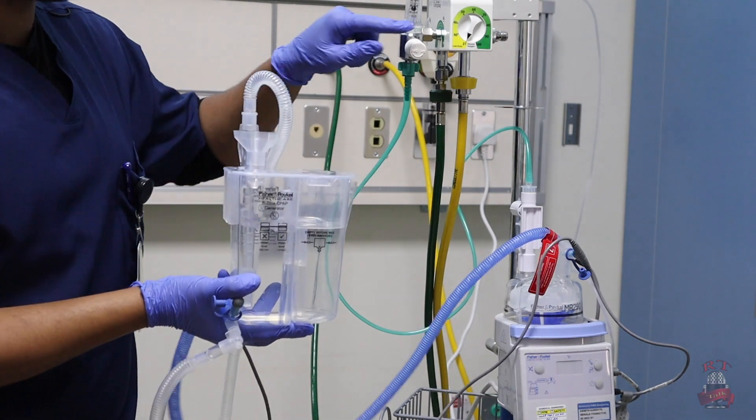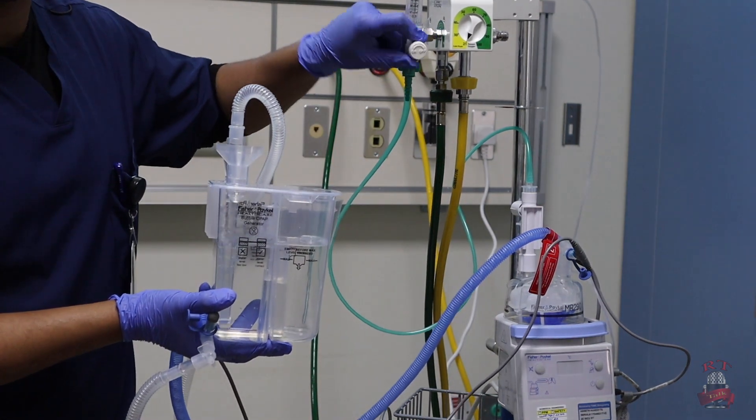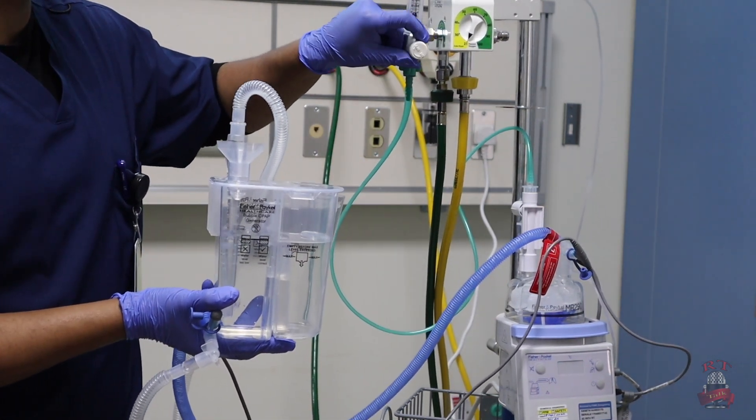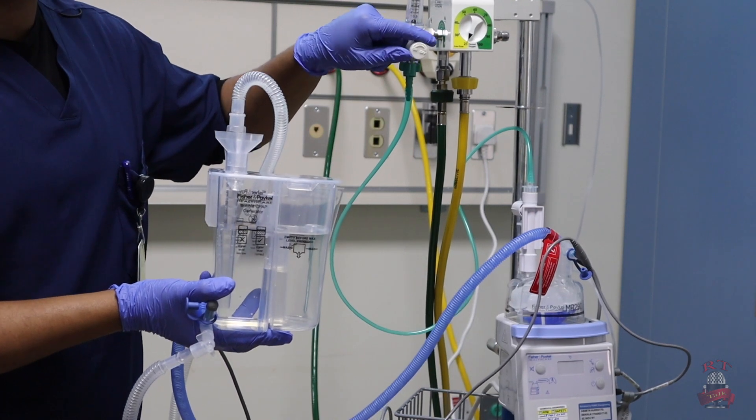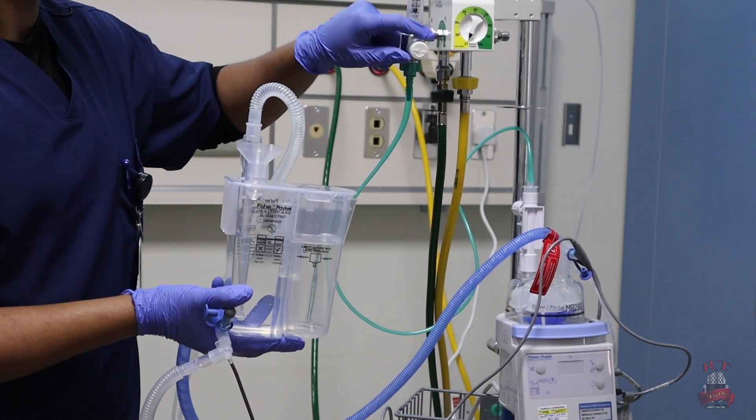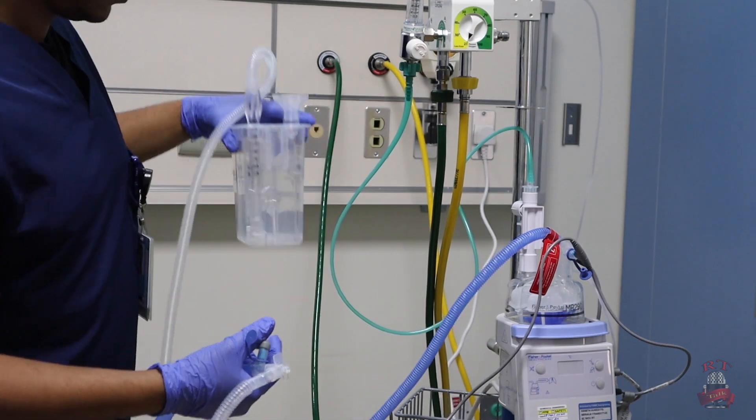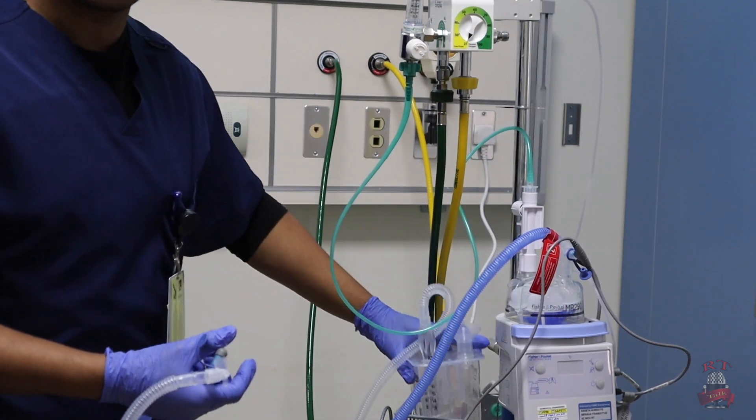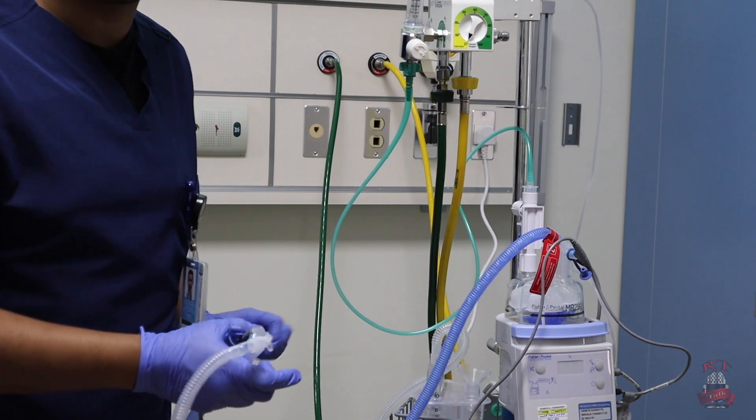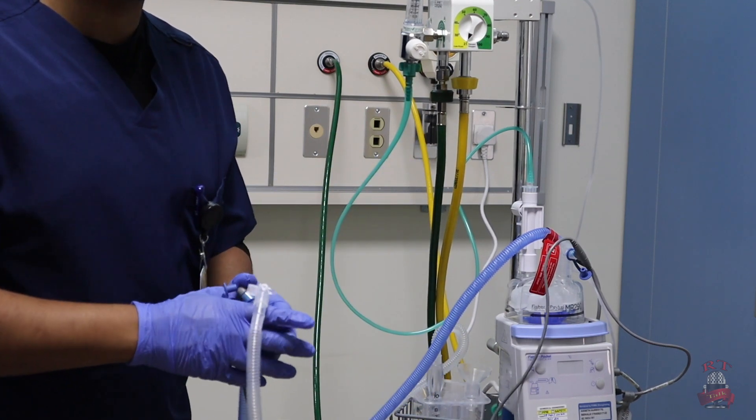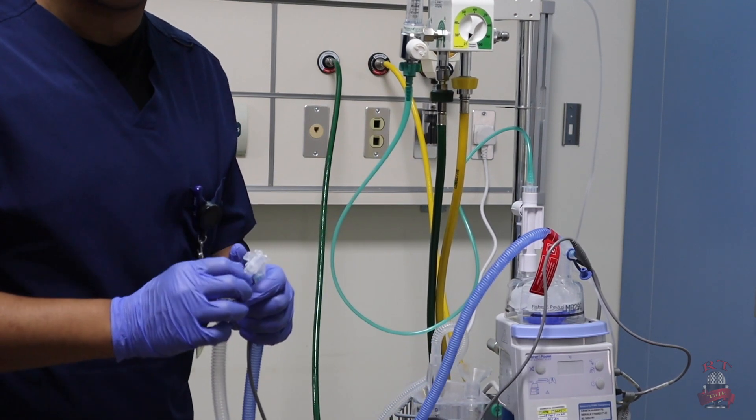Or your flow meter is already off. You didn't turn on your flow meter. Also it's not gonna work. So the most common problem with bubble CPAP is the leak. You have to make sure that your system is connected well. There is no leak and everything is okay.